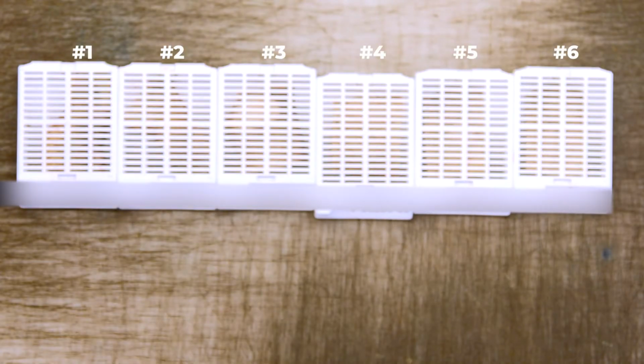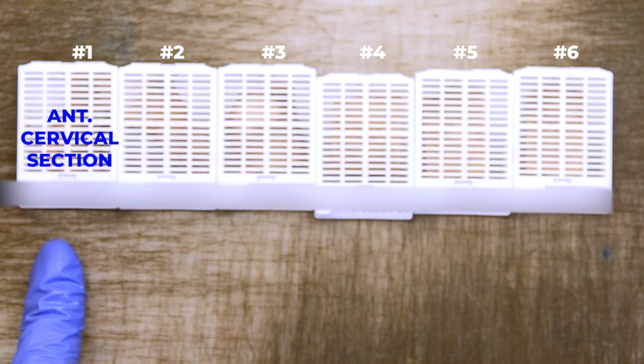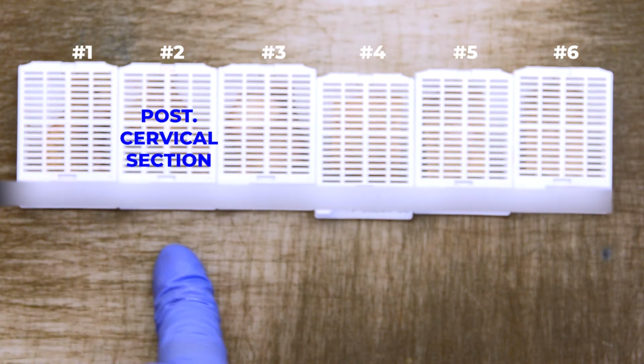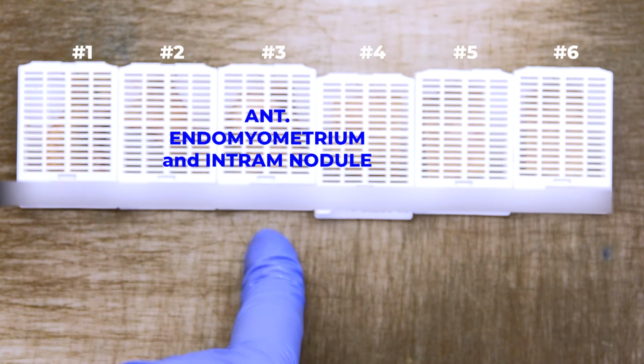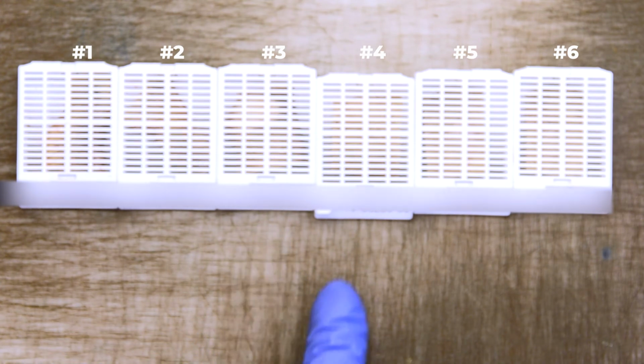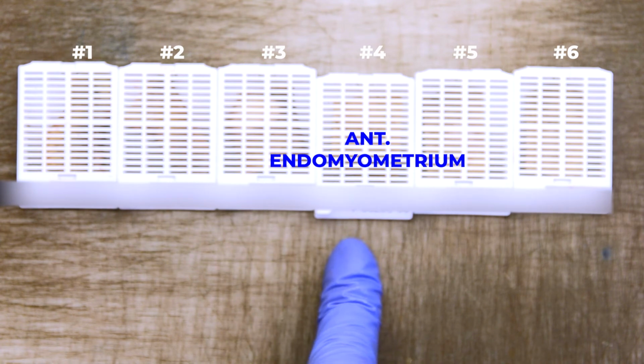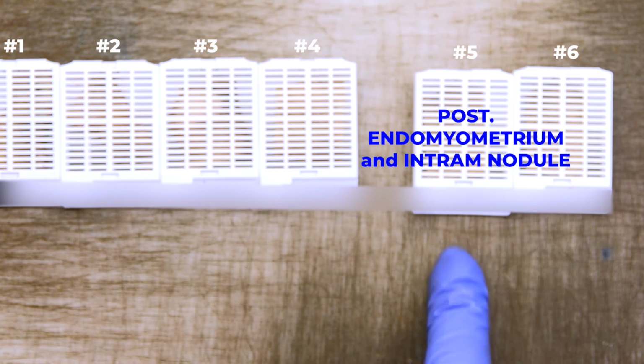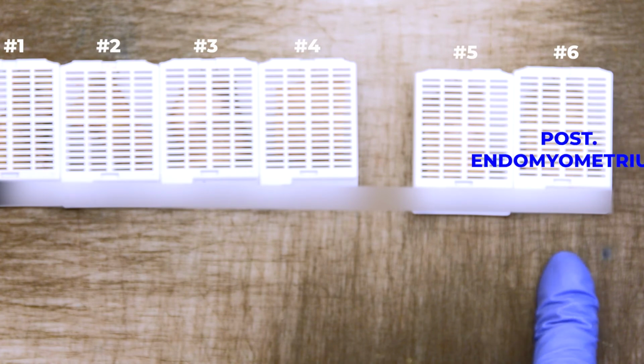To summarize our cassettes, in block number 1, we have our anterior cervical section. Block number 2 is our posterior cervical section. Block number 3 is our anterior endomyometrium with that intramural nodule. Number 4 is going to be our anterior endomyometrium without the nodule. Then we can move on to our posterior endomyometrium sections. The 5th block will have our intramural nodule, and our 6th block will be our unremarkable posterior endomyometrium section.